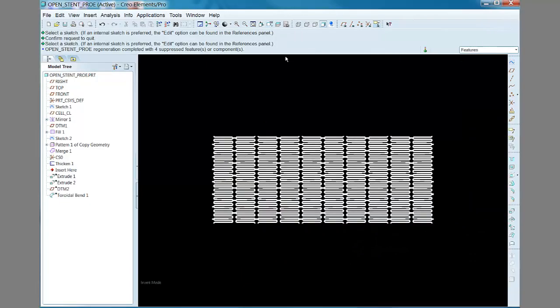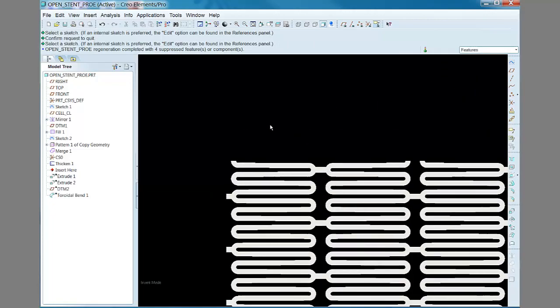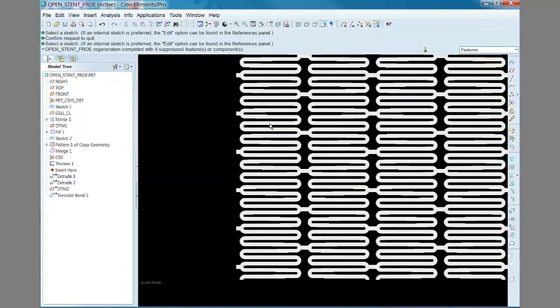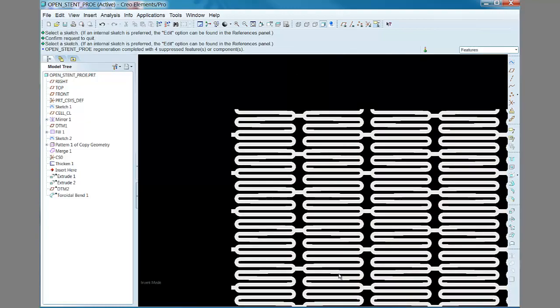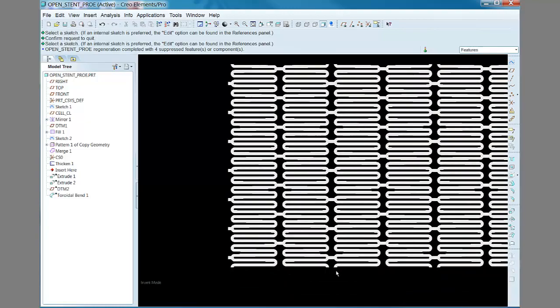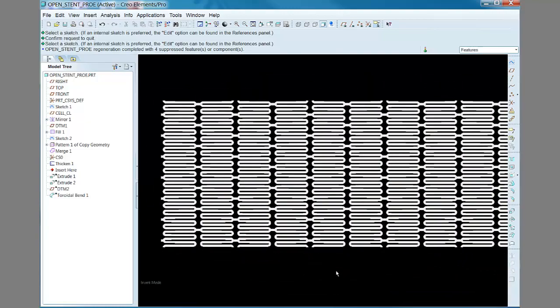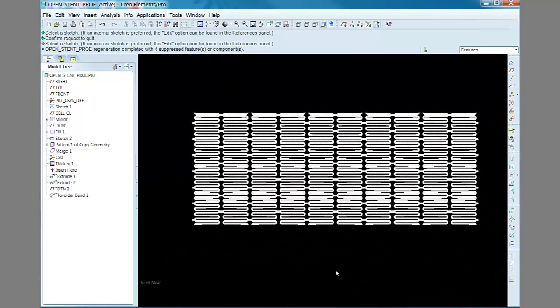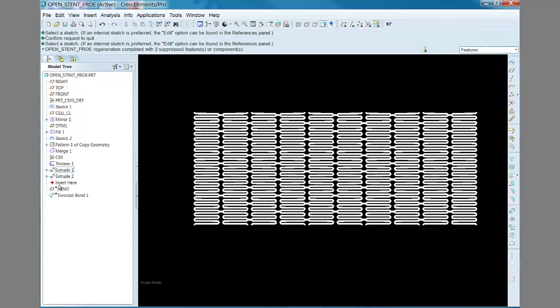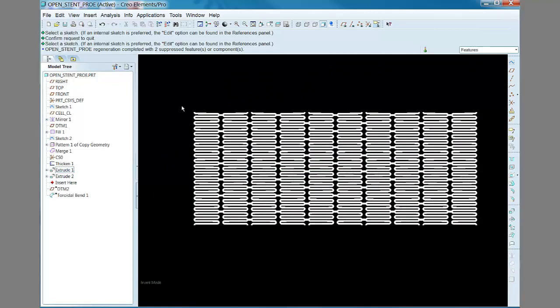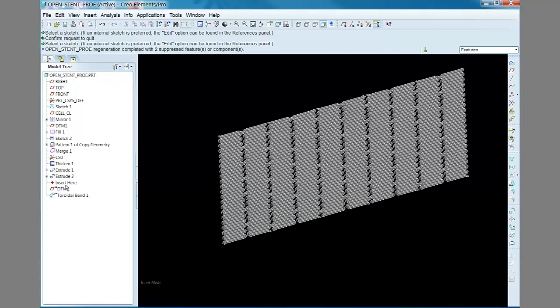Again, make sure that the horizontal edges match in the x or axial direction, or you'll end up with seams or unmatched edges in your toroidal bend later on.